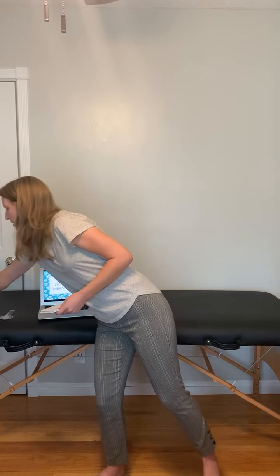So let us begin with an overview of the goniometer itself. First, in order to understand how to measure, you must understand the parts of the goniometer. There are three parts of a goniometer. There is the proximal segment, also called the stationary arm, since it is attached to the body, which is this middle part, and it doesn't move independently from the body, whereas the distal segment, or the part furthest from the trunk of the body, moves independently from itself.